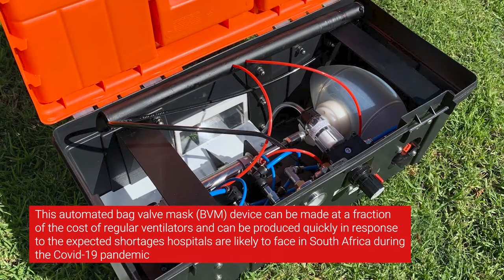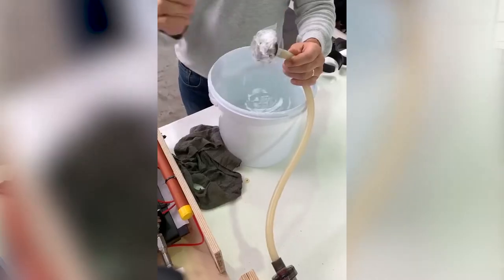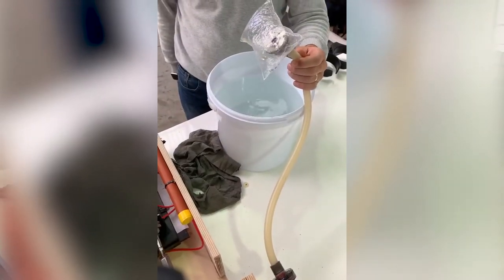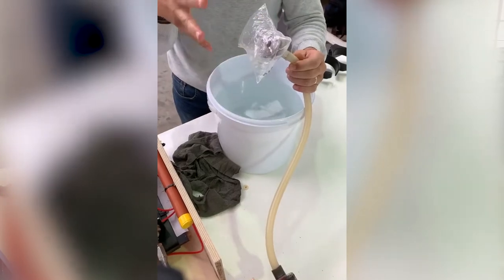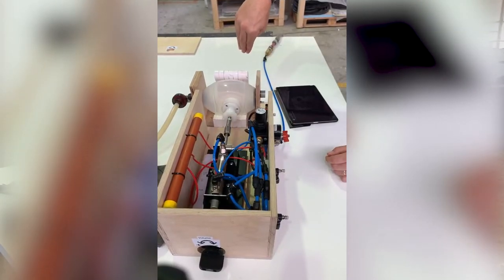We call it an automated BVM. It's a type of ventilator, although I wouldn't call it a ventilator. It's not an ICU ventilator at all. It is purely an automated BVM.